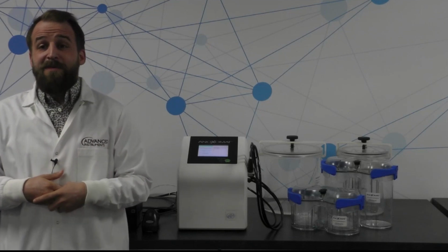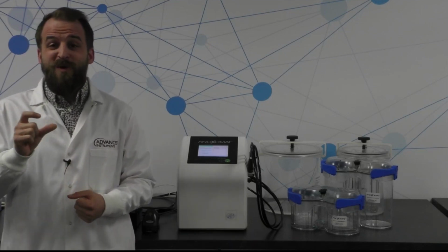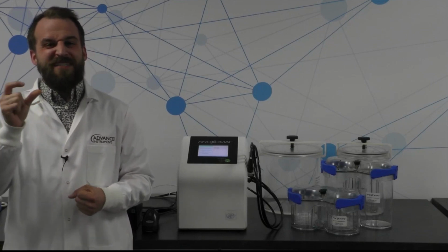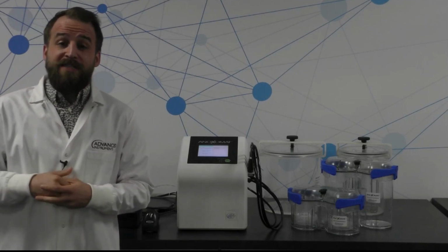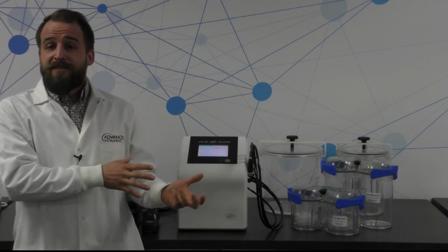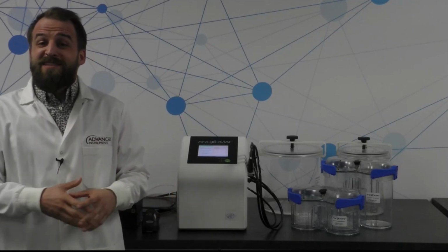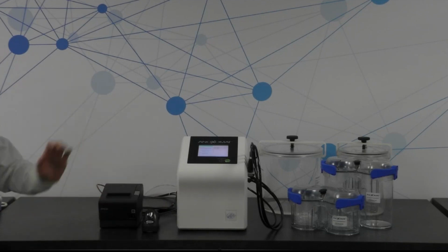And sometimes by the time we go check up on that little blue strip to make sure that it turned white, we go back and guess what? It's still blue. And then we missed our chance to grow our anaerobe, or we really decrease the likelihood that we'll be able to recover the anaerobe from whatever our primary sample type was. So this system really helps you avoid that. And when I walk you through the UI, I'll show you exactly how it does that. But the printout is an important part of how we track those QC mechanisms.